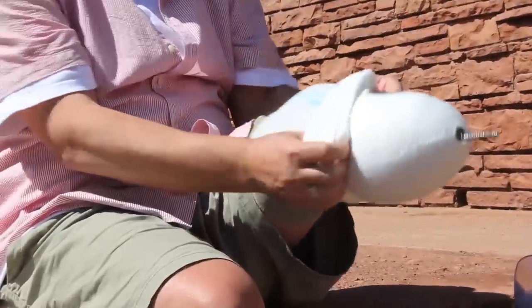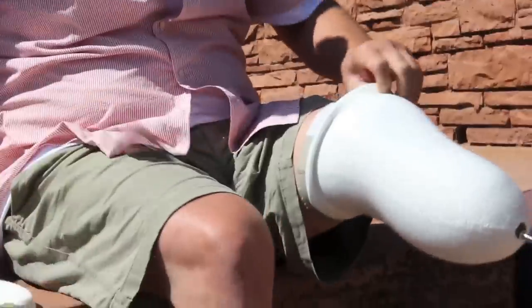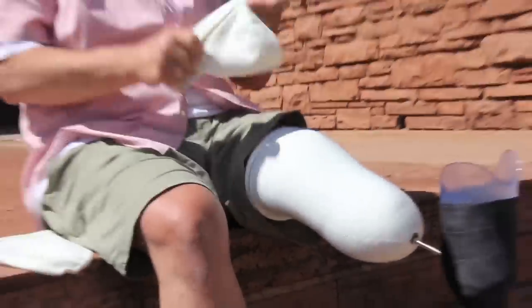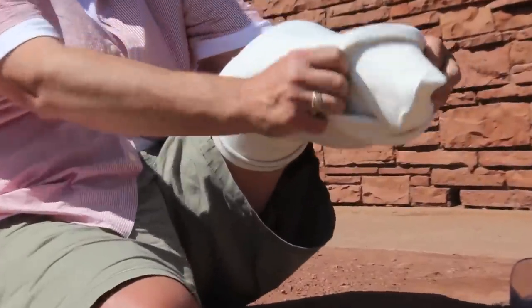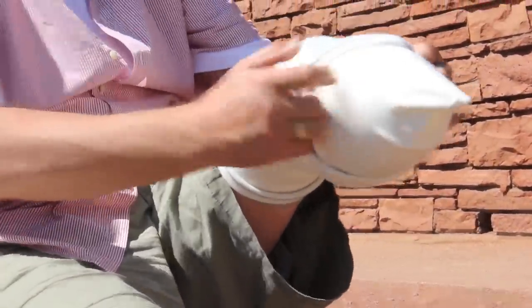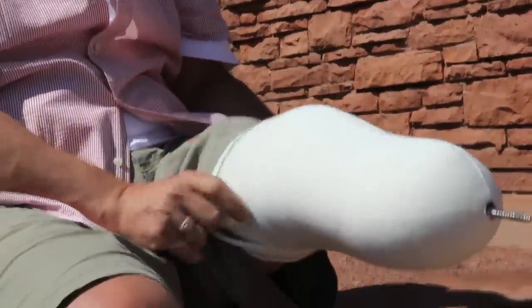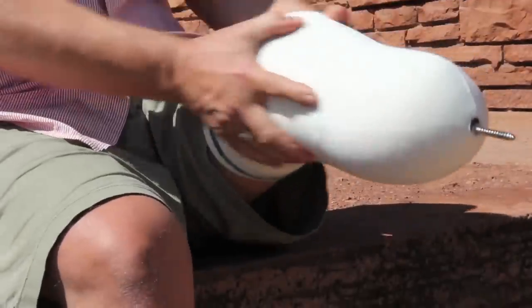Always be sure to work out all the wrinkles in the socks, and if you use a pin locking liner or system, make sure the sock does not bunch in the area of the pin. Always wash socks by hand and line dry — this will help extend the life of your socks and maintain their full thickness. If you're still experiencing discomfort or skin irritation, always contact your prosthetist to schedule an appointment in order to evaluate and resolve your issue.